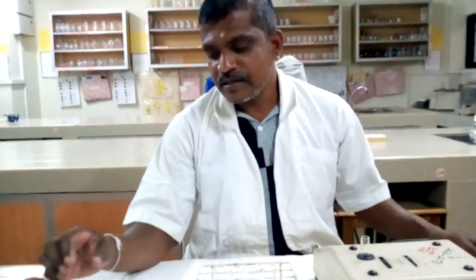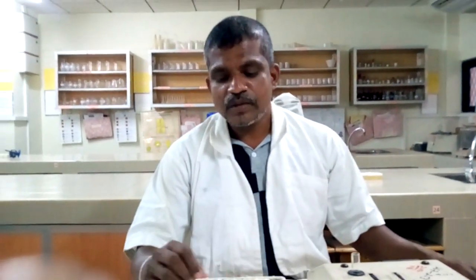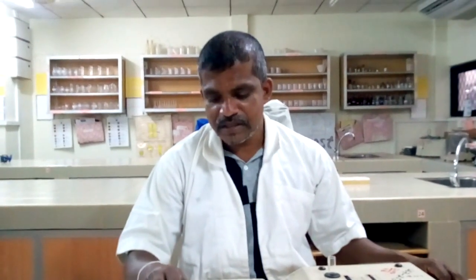Right, okay. Today I am going to discuss the test method for the estimation of hemoglobin. There are different methods to detect the hemoglobin level of a patient. Some are visual methods, some are photometric methods. Visual methods are very simple but not accurate, and the accurate methods are photometric methods.